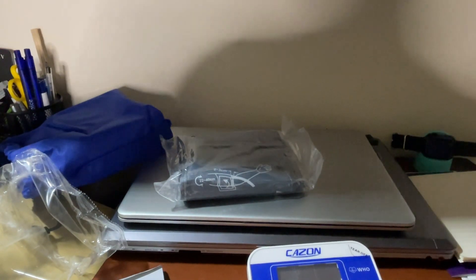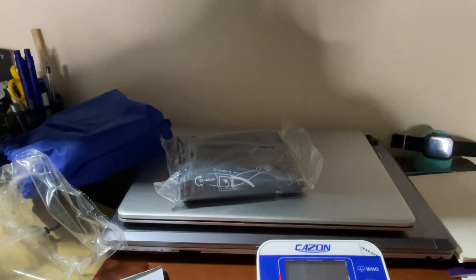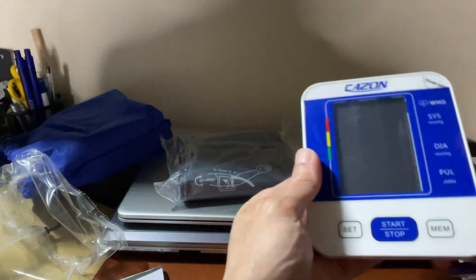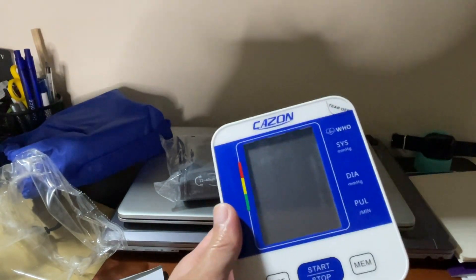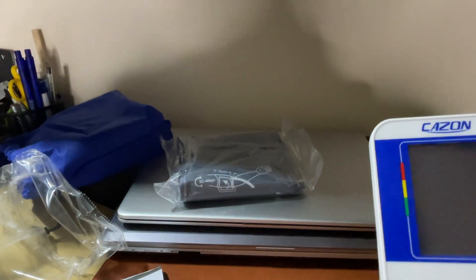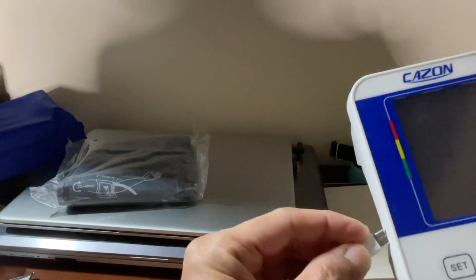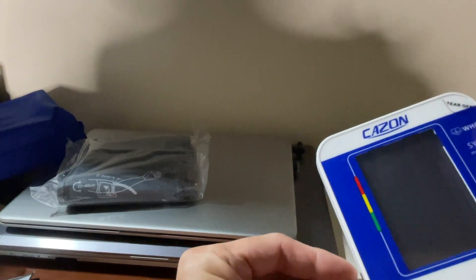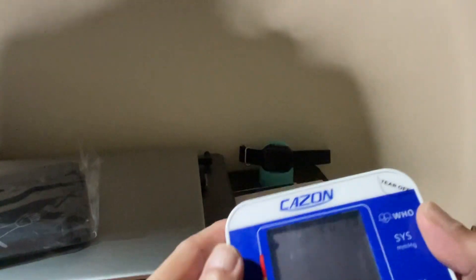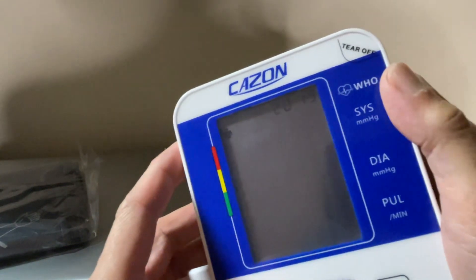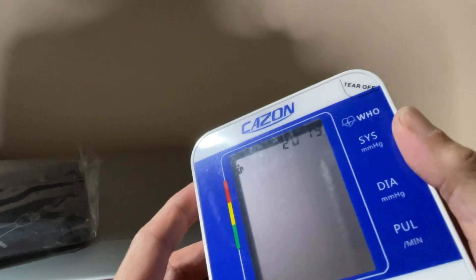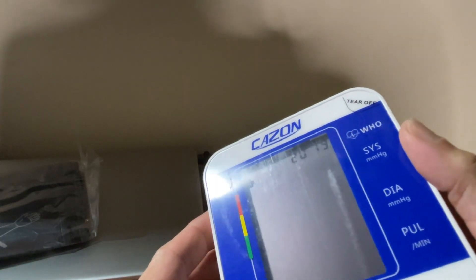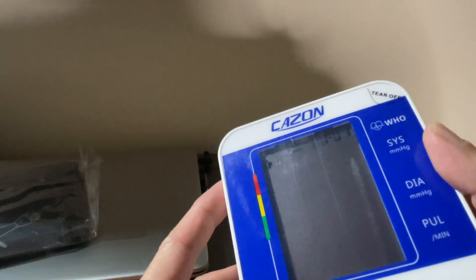Let's try. I have my cable here ready. There we go. It says here year 2019, so we need to set that.